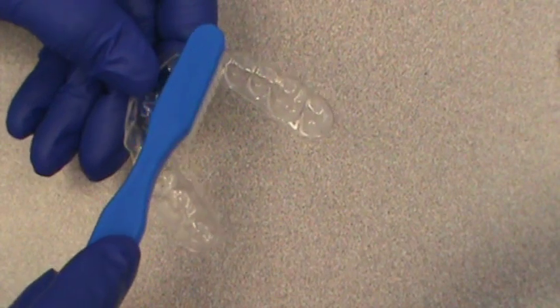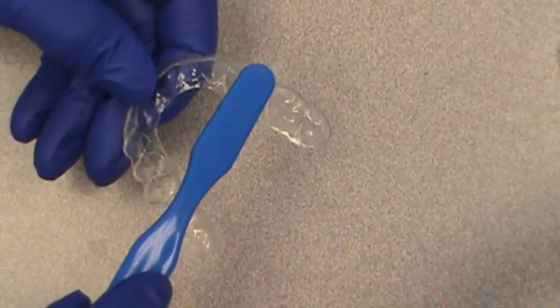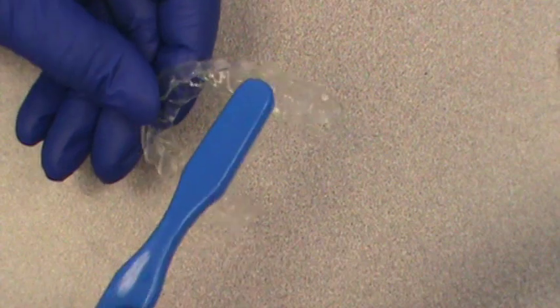You don't want to use toothpaste on this because it tends to crack the plastic and make it not as clear.